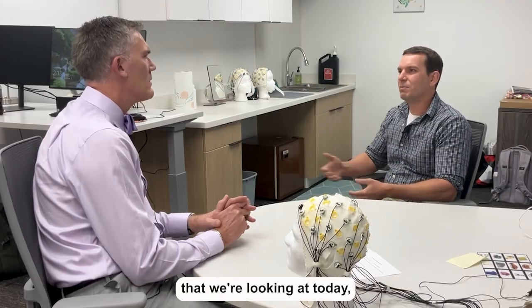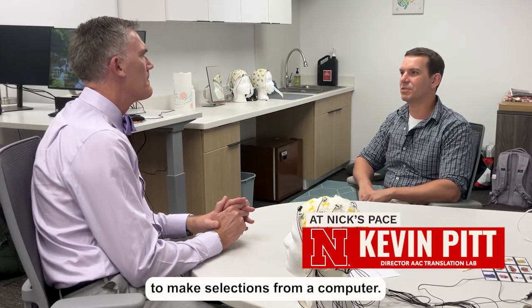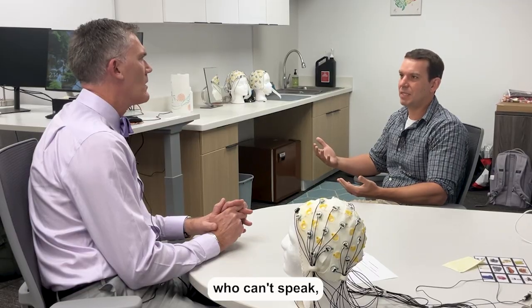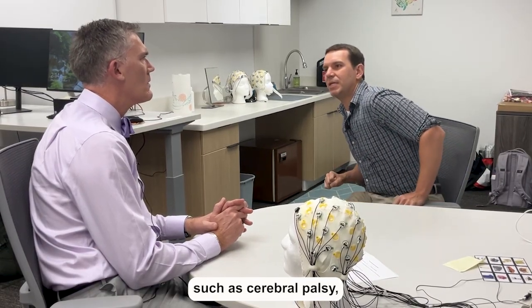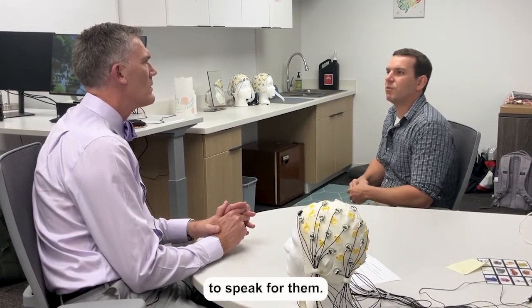With this project that we're looking at today, we're really interested in using brain signals to make selections from a computer. So basically enabling a child who can't speak, maybe they're locked inside their body because of a diagnosis such as cerebral palsy, to be able to make selections from a computer to allow that computer to speak for them.